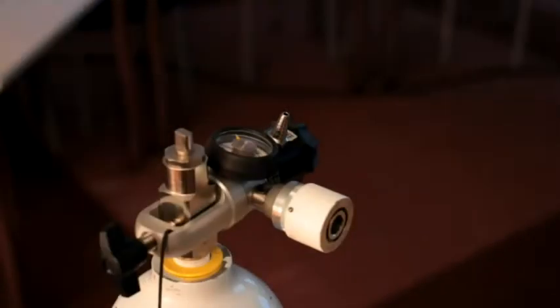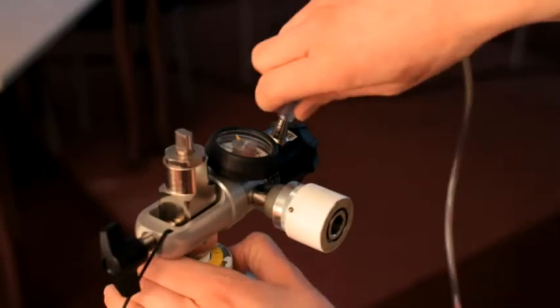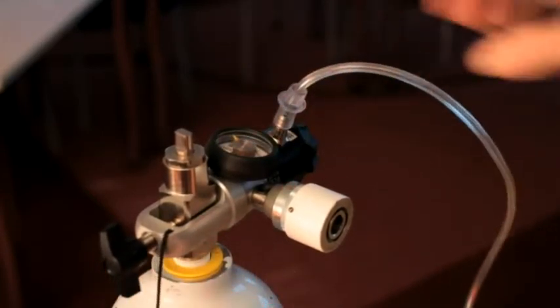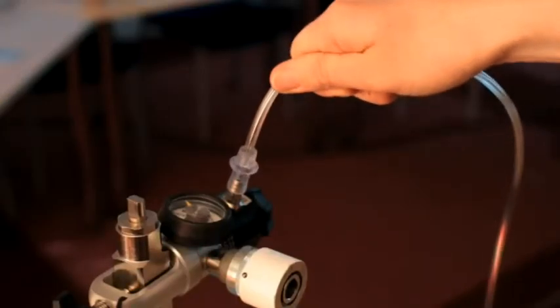The universal fir tree outlet is designed to fit all common therapy tubing. Push the tubing over the end of the fitting and give it a tight tug to confirm that it is secure.